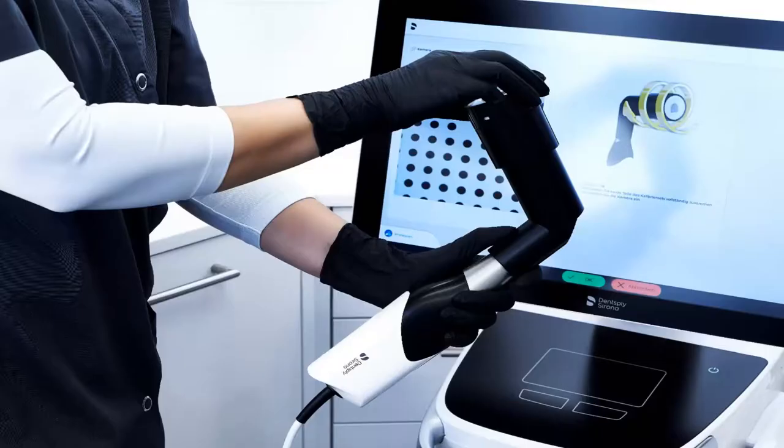We now have to perform a calibration. As we mentioned earlier, the disposable windows come in packages of 50. The calibration process must be performed once for each package. For detailed information about this process, please refer to our video tutorial entitled Calibration Processes with PrimeScan.